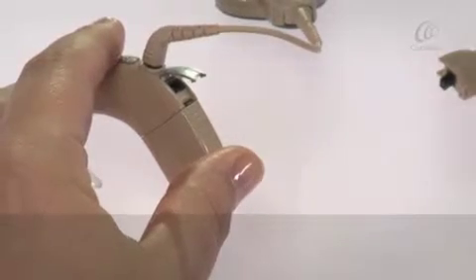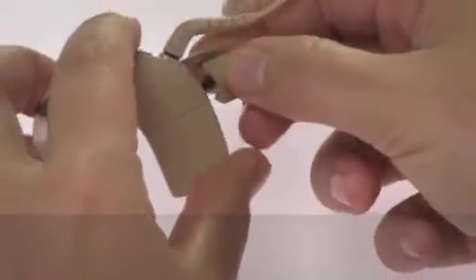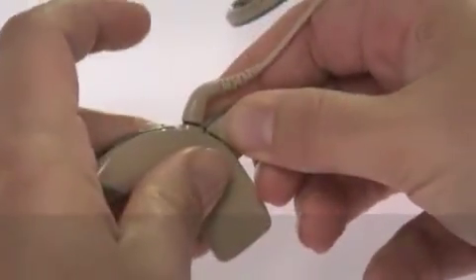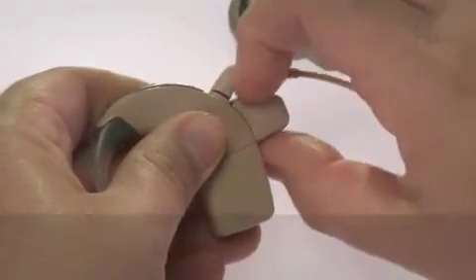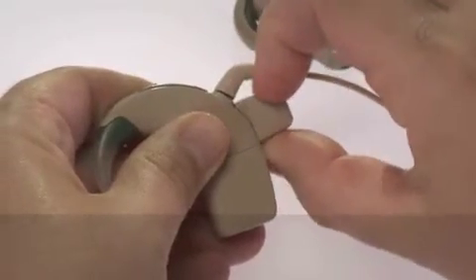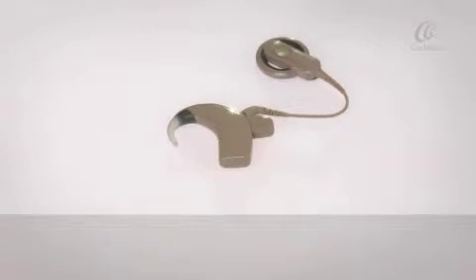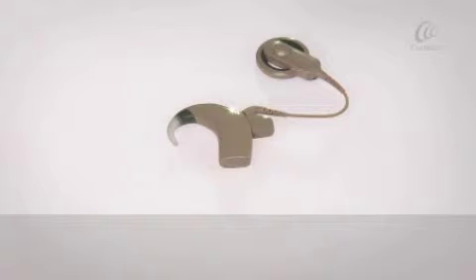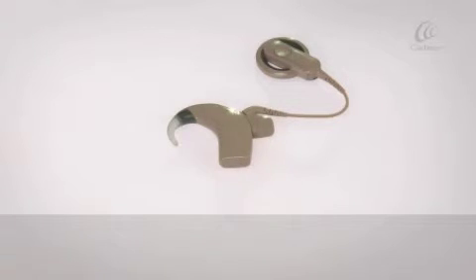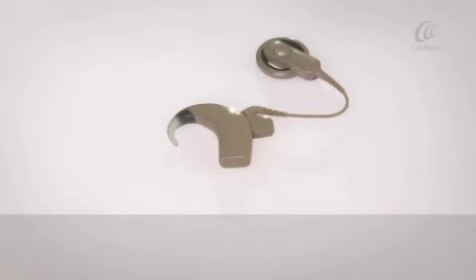Hold the sides of the FM device and carefully push it into the accessory socket until it clicks into place. When you connect the Phonak ML14i Dynamic FM, your processor automatically detects it. The Phonak ML14i Dynamic FM will turn on automatically when you plug it into the processor.